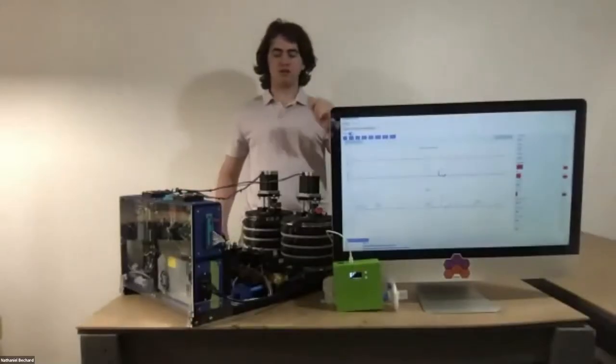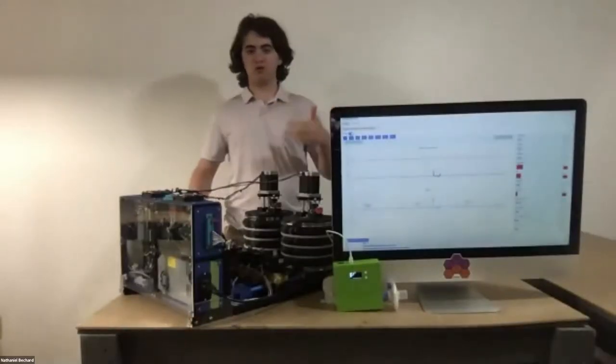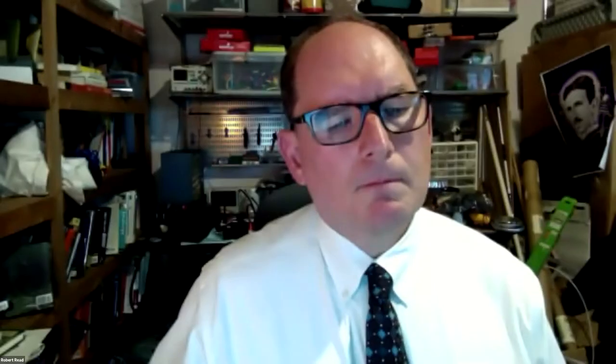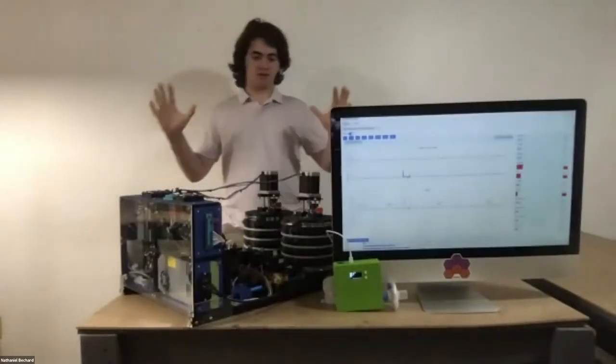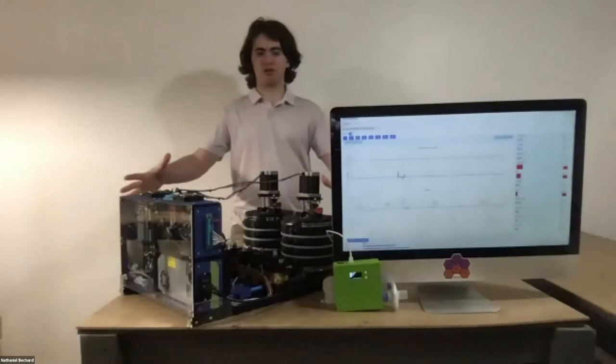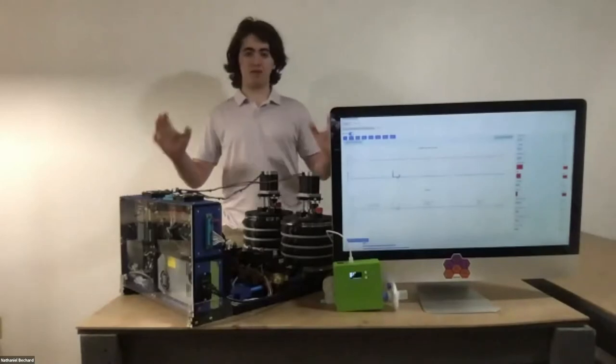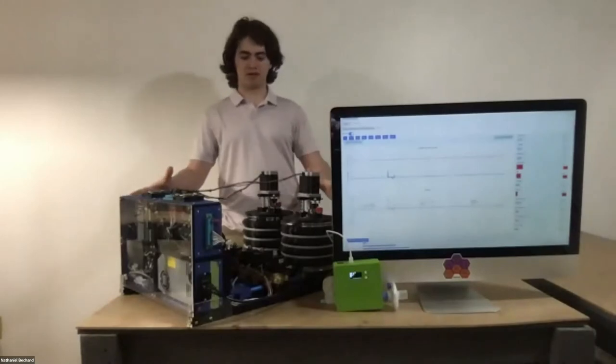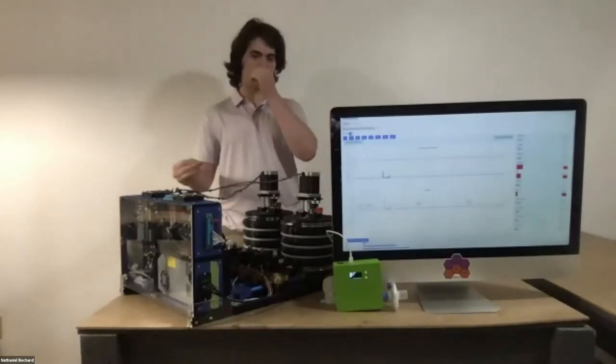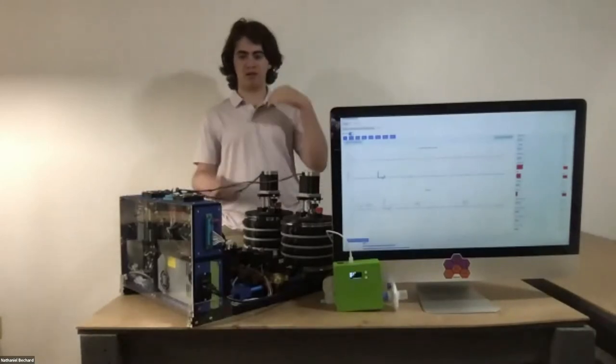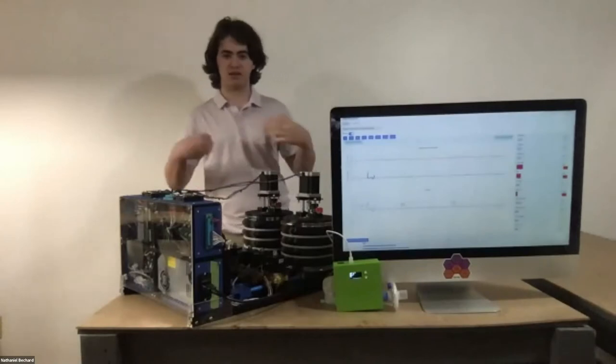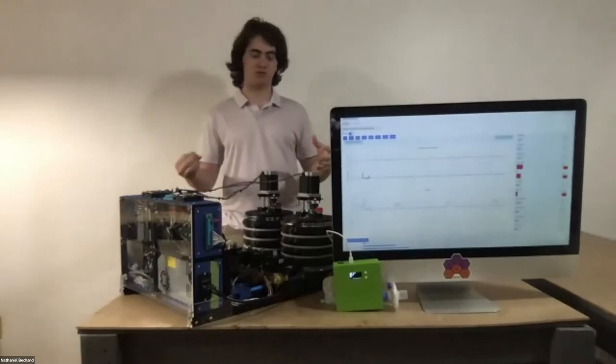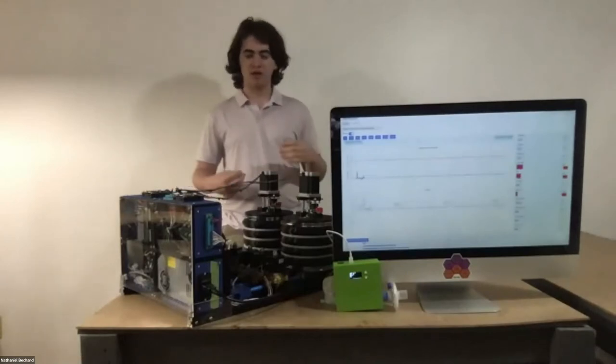Hi, everyone. Does my audio sound good? Everyone can hear me fine? Okay, perfect. All right. So this is our newest prototype of the PolyVent ventilator that we've been developing since the ventilator crisis in March of 2020.